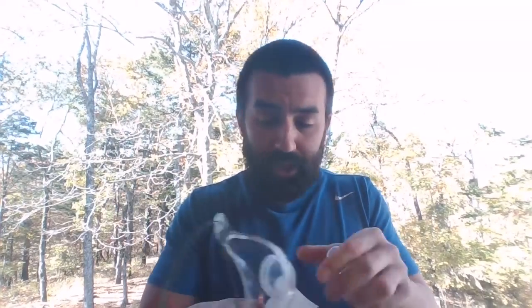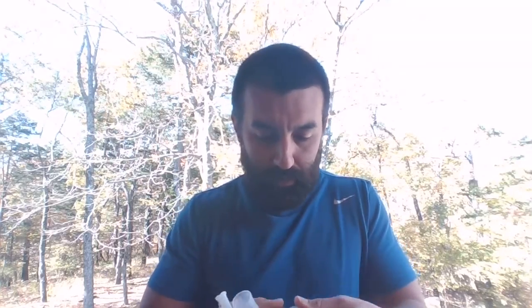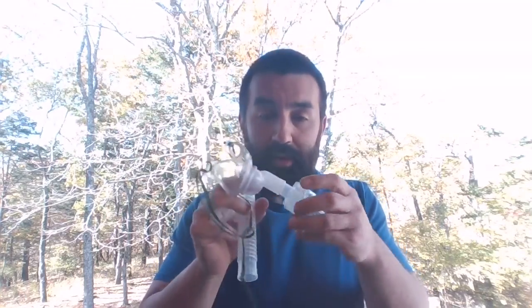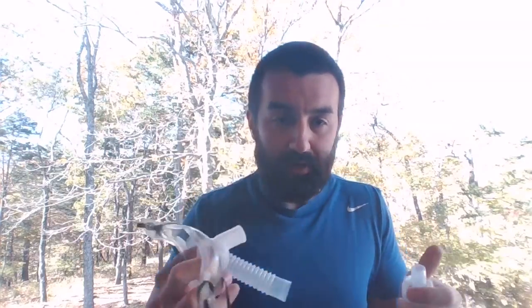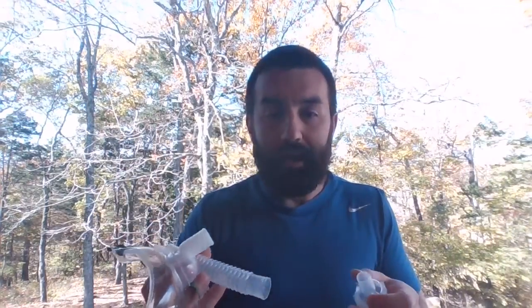Once again, just because that thing fits in like this, you're never going to be able to get it sitting flat. By using the T-piece that's blocked off with the plastic and using the corrugated tubing, you're going to be able to effectively give that patient a decent nebulizer treatment and a good respirable dose. So that's the three different ways to hook that neb up.